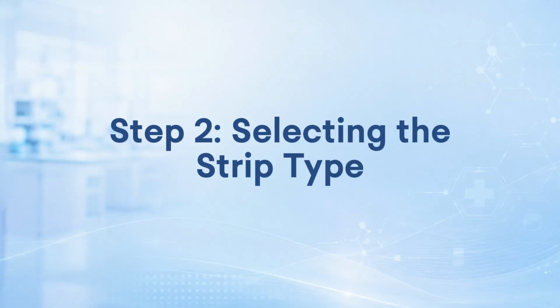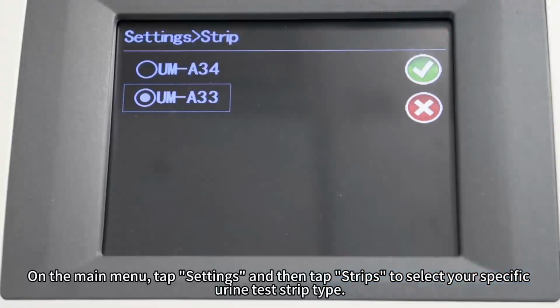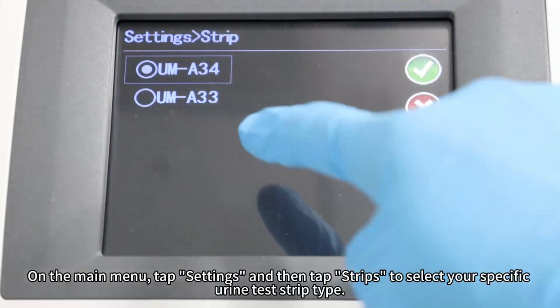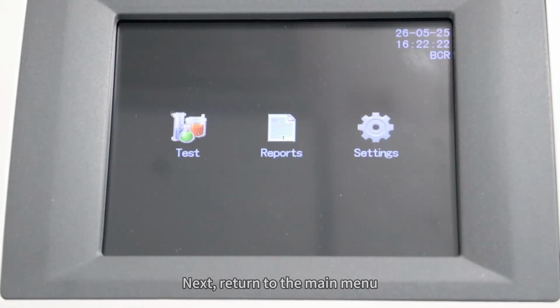Step 2. Selecting the strip type. On the main menu, tap Settings, and then tap Strips to select your specific urine test strip type. Next, return to the main menu.